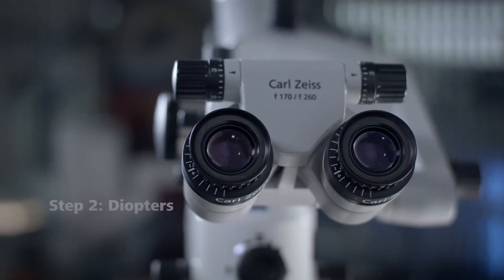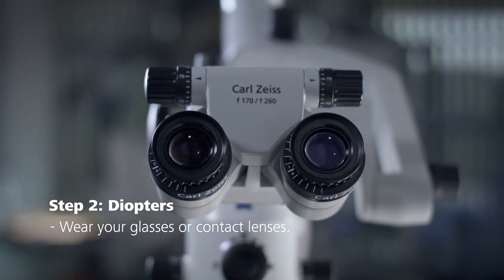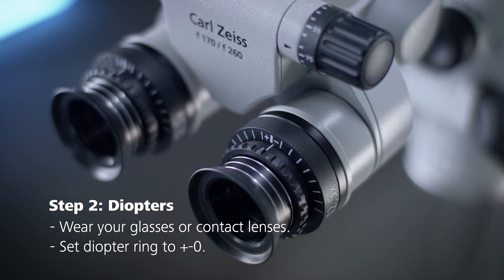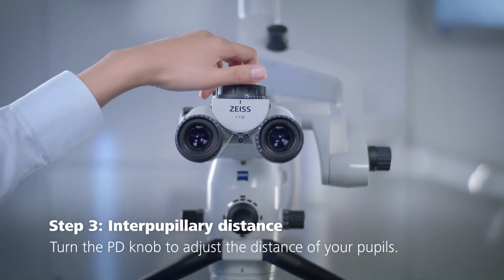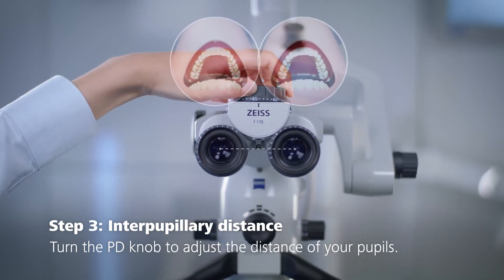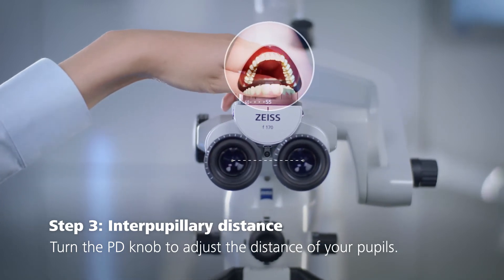We recommend you always wear your eyeglasses or contact lenses. If you wear eyeglasses with vision correction, set the diopter ring to zero diopters. Use the nub on the binocular tube to adjust the distance of the eyepieces to your interpupillary distance so that the two eyepiece images merge into one.